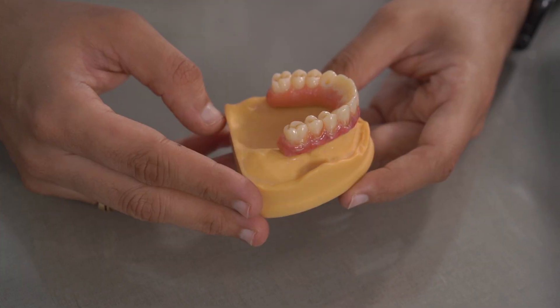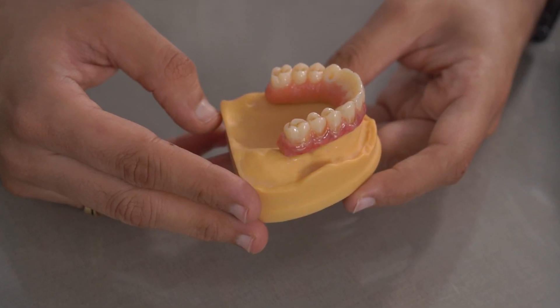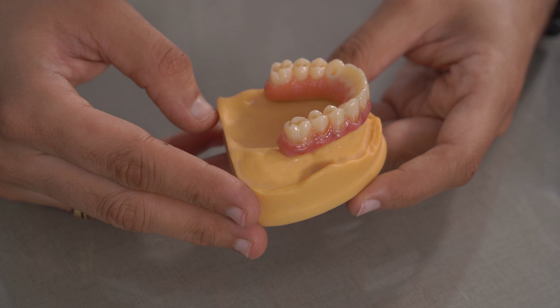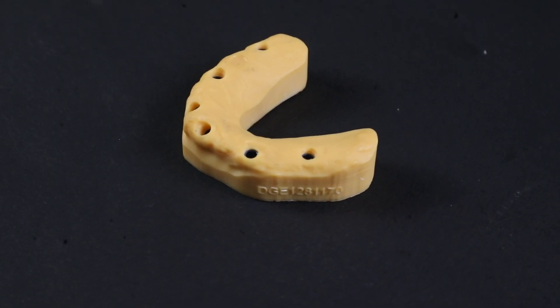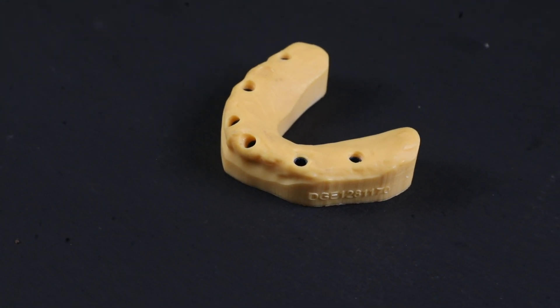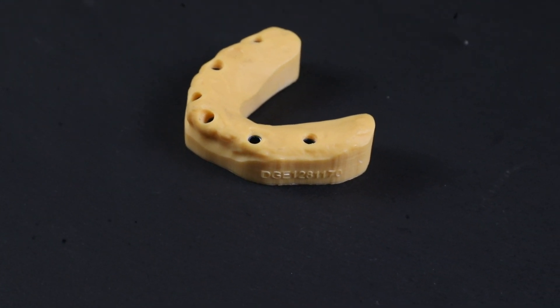This is an implant dentist's dream come true — a full arch, fully digital implant level restoration fabricated using the most precise digital impression system, giving us immense control and absolute accuracy every single time. In today's video, I'm going to talk about some basic armamentarium that you need to do implant level scans with your intraoral scanners.